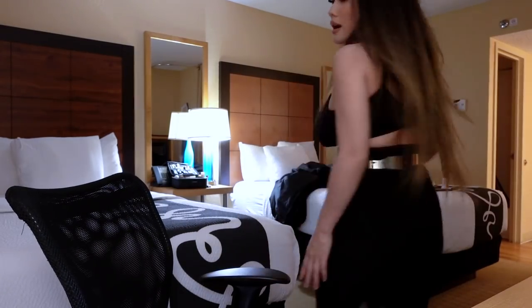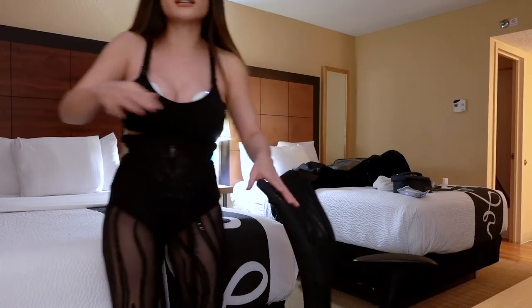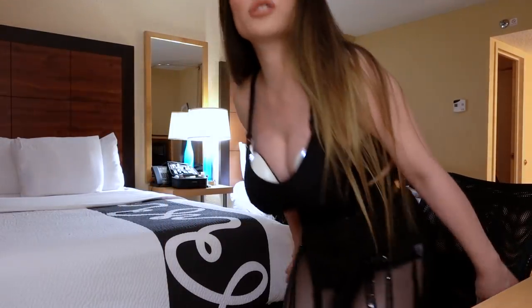Let's talk about the pros. Obviously, they're portable. I'm not stuck to anything — I am free to go. There's no strings stuck to the wall, so I can do anything. I can just get up, walk around and do light stuff. So if I want to clean up here and there, I can do it. I just came back from a show and I'm still in my costume, but my boobs were super engorged so I have to pump like ASAP.